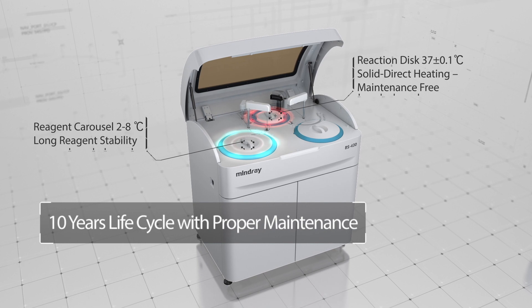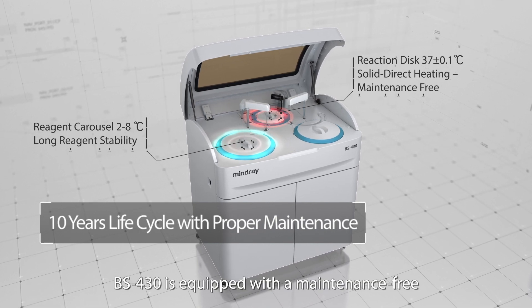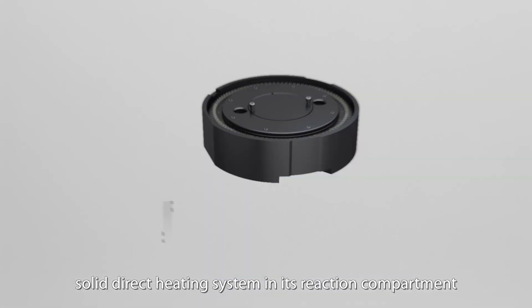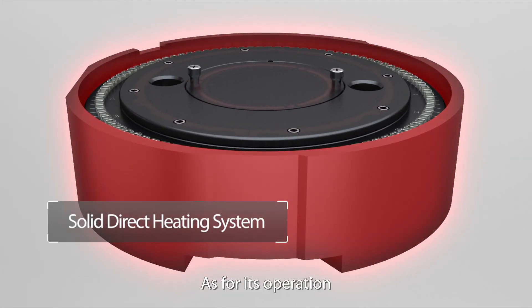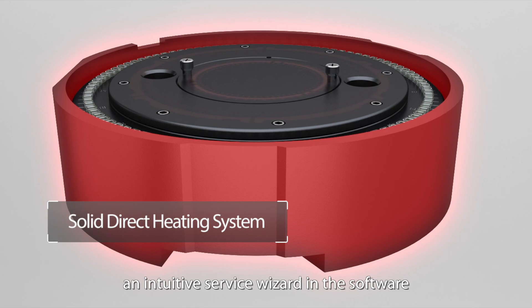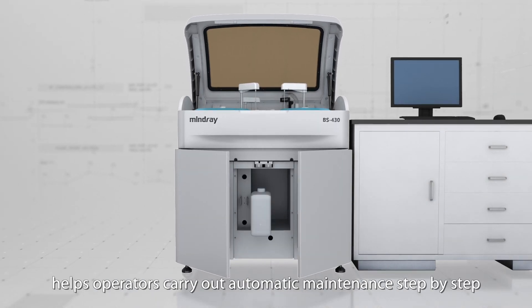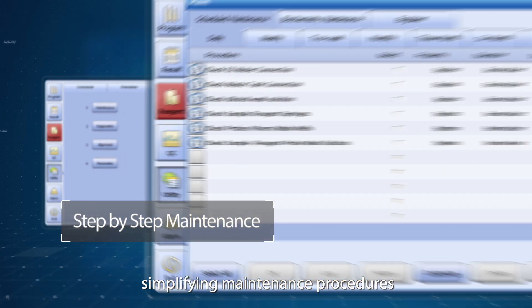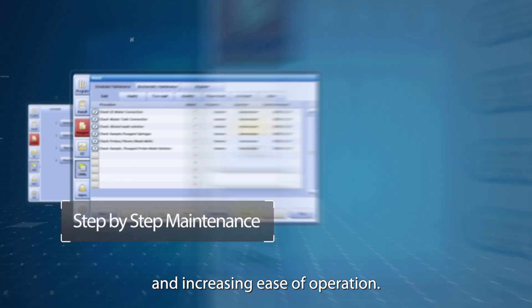In terms of maintenance, BS430 is equipped with a maintenance-free, solid direct heating system in its reaction compartment. As for its operation, an intuitive service wizard in the software helps operators carry out automatic maintenance step-by-step, simplifying maintenance procedures and increasing ease of operation.